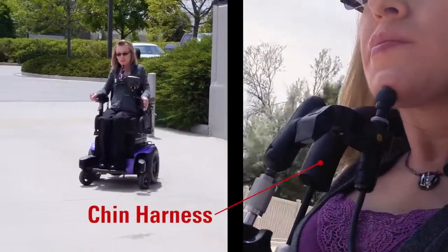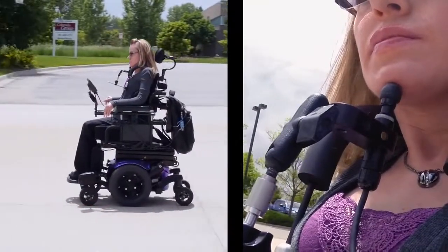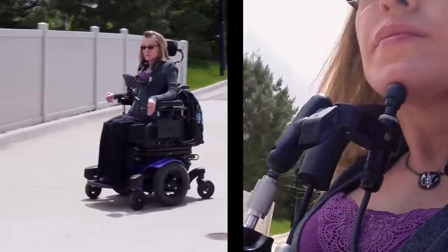The chin harness provides the opportunity for the user to utilize the MicroPilot or MicroGuide with his or her chin.